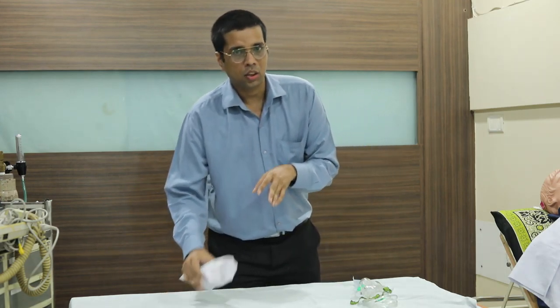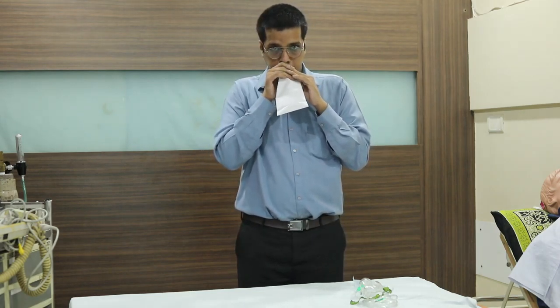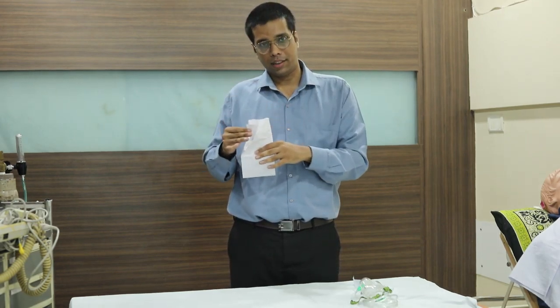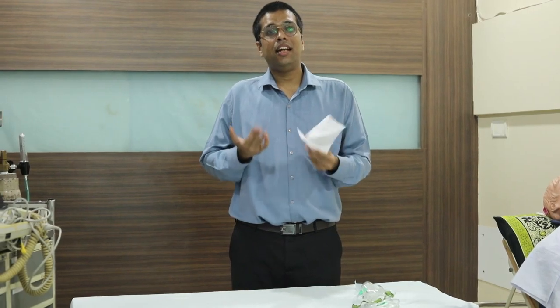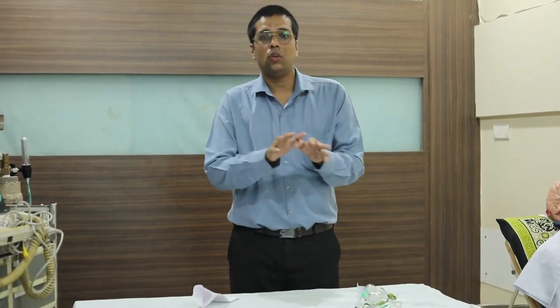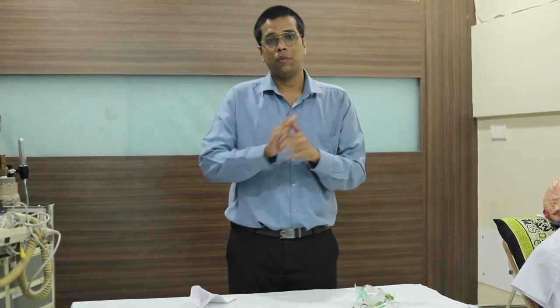I will take a paper bag here. Just look at this bag. When I exhale the gas out, the gas is collected in the paper bag. So when I inhale again, I am inhaling my own gas. This basically illustrates the basic concept of rebreathing and non-rebreathing.